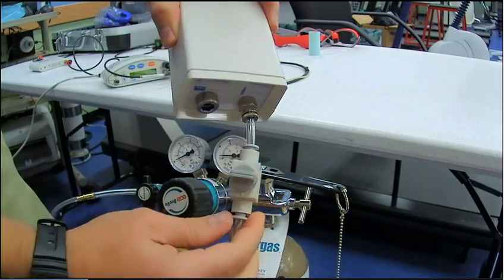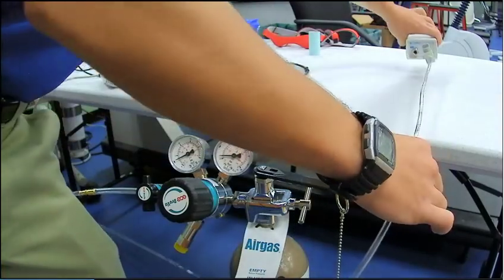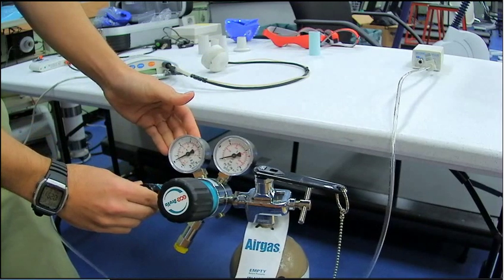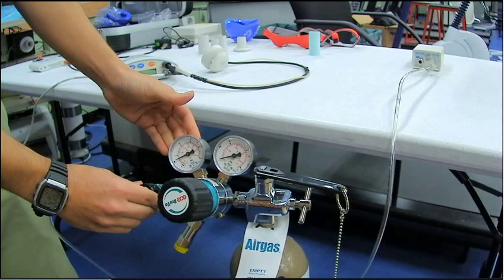Now essentially what we're about to do next is open up the gas line to the actual gas tank. Now here's where things start to get troublesome. If you don't do all this and you're trying to move things around, one valve might be closed, one might be open, and the gas needle isn't going to move.